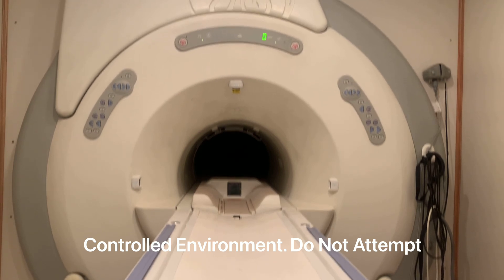The camera is mounted on the front wall at the furthest point away from the magnet. At this distance, the magnetic field is about 2 Gauss. As you can see, the camera is having a very difficult time coming into focus. The dynamic environment of the magnetic field and eddy currents in the MRI scan room are causing the small metal components in my camera to oscillate, and as a result, it's warping the video.